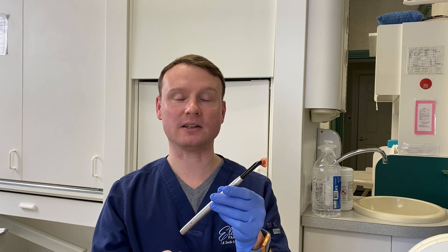This is our curing light. This will turn a lot of our dental materials from a liquid or putty state into a solid state. And I'm going to demonstrate that for you in a few moments.